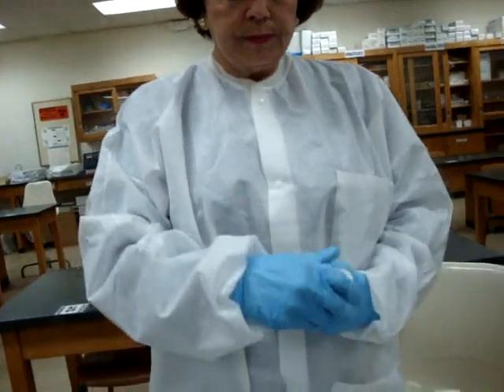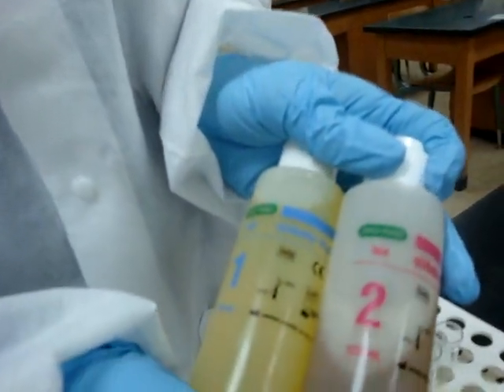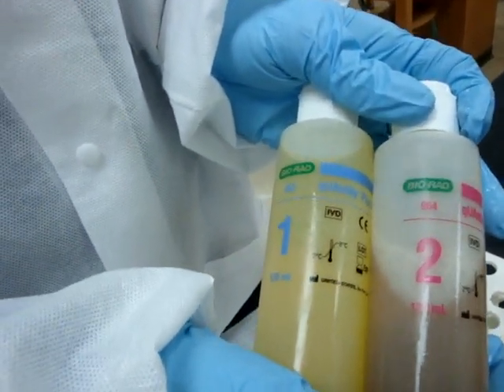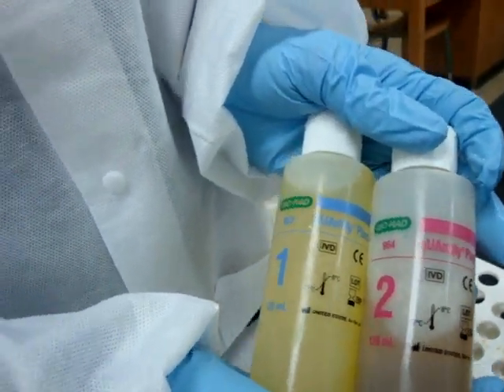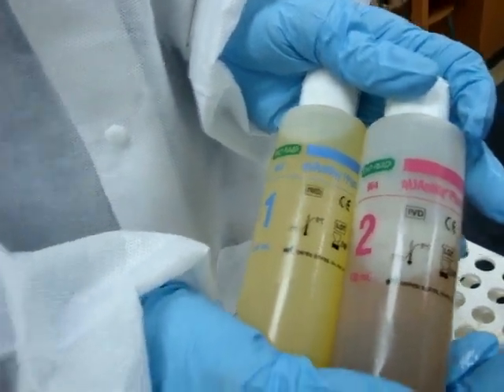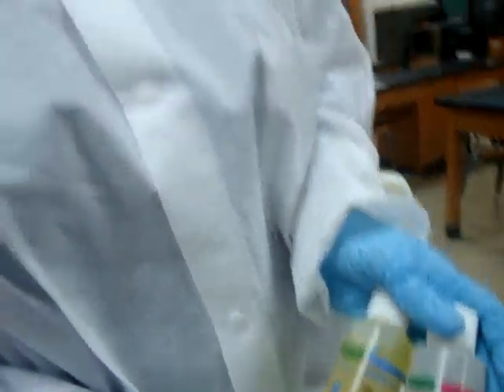We have here two controls: a quality control one and a quality control two. One is for normal urine — negative — and two is for positive. So we want to check both the positive and the negative results for our dipsticks. Why do we do quality control? We want to be sure that our dipsticks are working, so we have to prove that they are working by doing our quality control.